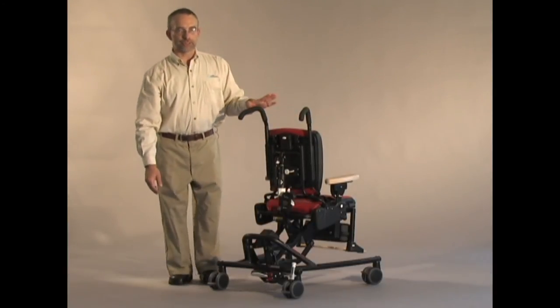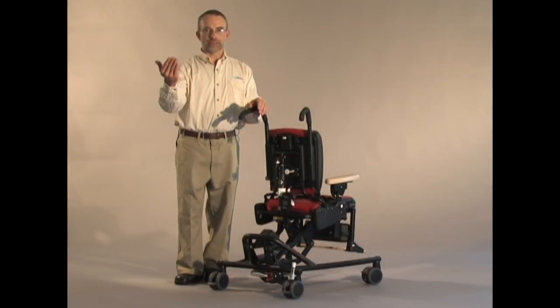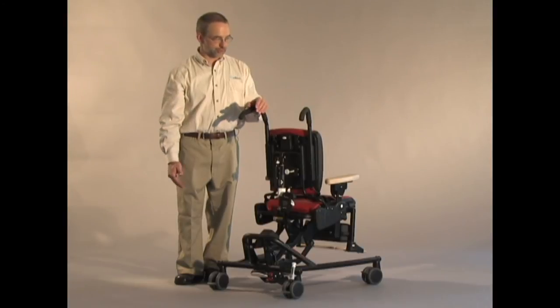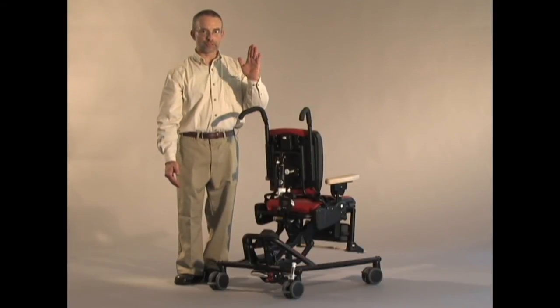This is good for children with extensor tone that may thrust against the backrest to enable that backrest to move with the child.